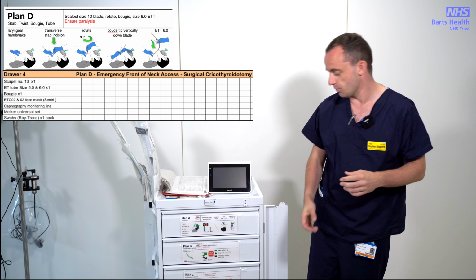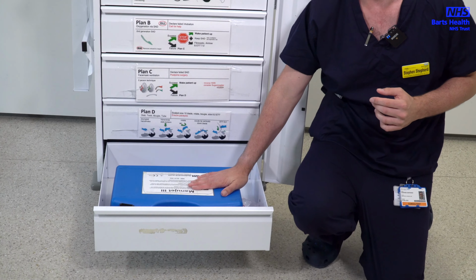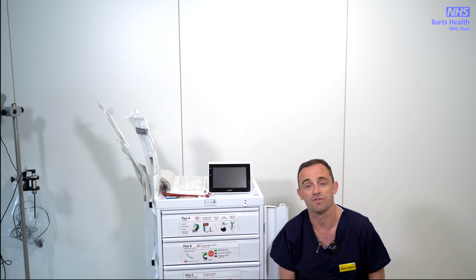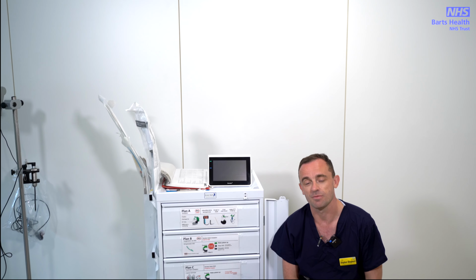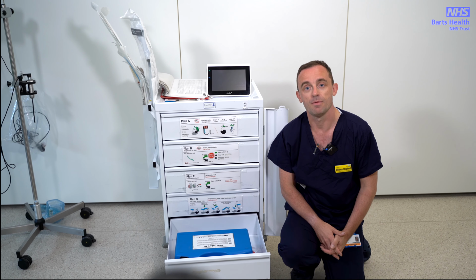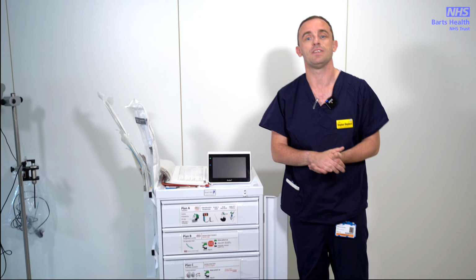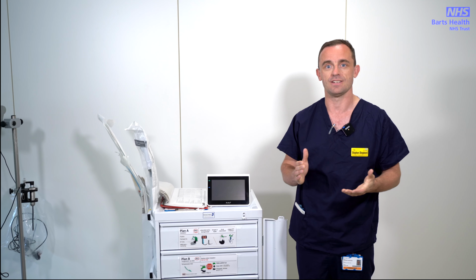Unlike other sites, we also have in the bottom drawer a Manujet, and the reason for this is we have a relatively high proportion of thoracic surgery, and occasionally those people need use of a rigid bronchoscope with manual jet ventilation. Again, this is not something that's standard practice, nor would we expect it of anyone without training, but we do a lot of rigid bronchoscopy in theatres, and you'll hopefully pick it up then. But again, we're always here to help.